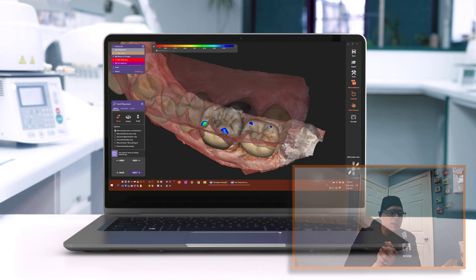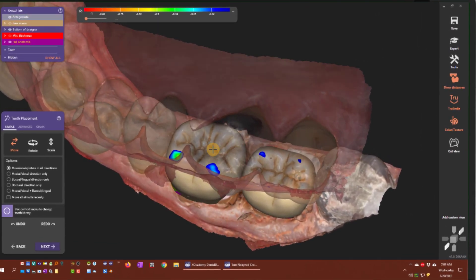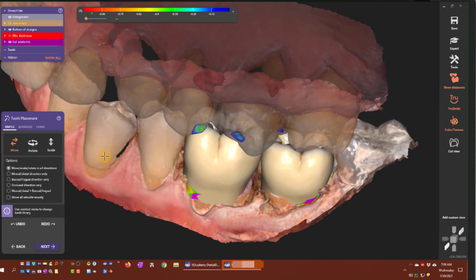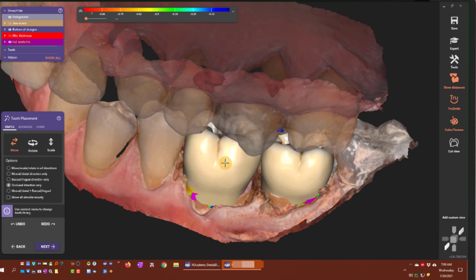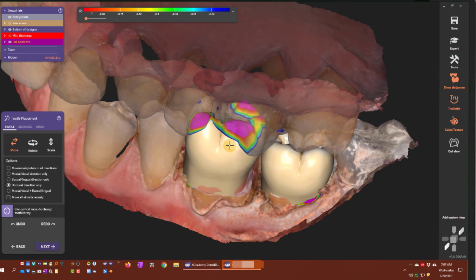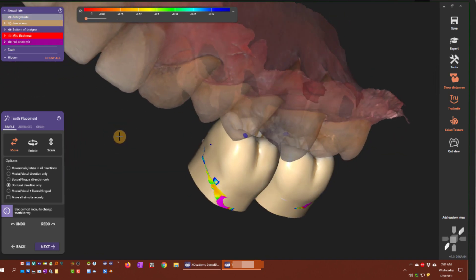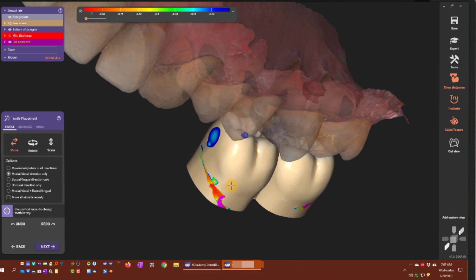I'm designing two crowns here, and you can see it has always shown the contacts of the occlusion of the opposing dentition. If I just move it occlusally, you can see that the contact strength — the intersection of this crown and number 19 — changes immediately as I'm moving it. And the same thing: I'm going to turn off the lower jaw scan, and even when I go side to side, you can see the adjacent intersection, the contact strength.